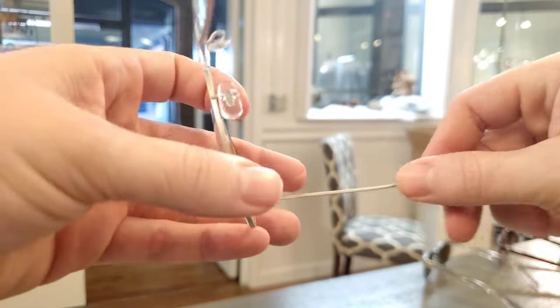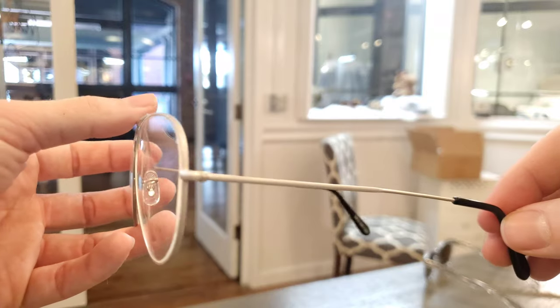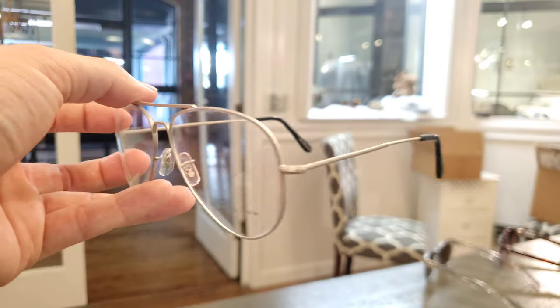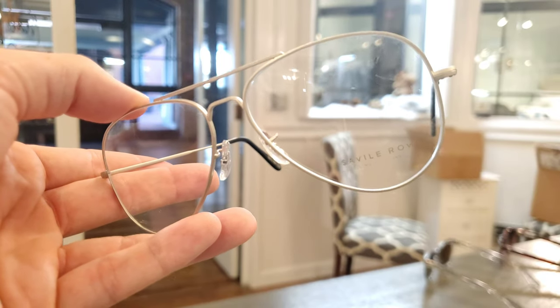That just amounts to a very slight arc. For a metal frame, you fold the frame and see exactly how it's sitting and which direction you want to go. If you want the lenses to come in towards the cheek more, you bring the hinge down to get that lens where it belongs. You match and do the same amount of bend on the other side — not necessarily bent to the same exact place, because not everybody's ears are level. That's a whole other topic; I'll link a card to the right video for that correction if that's your problem.